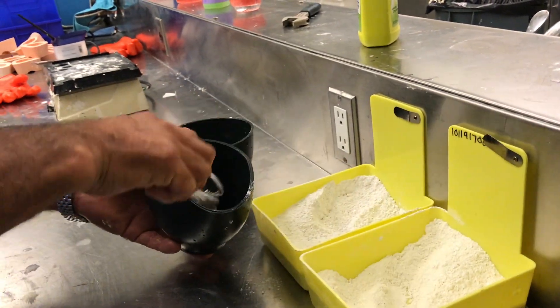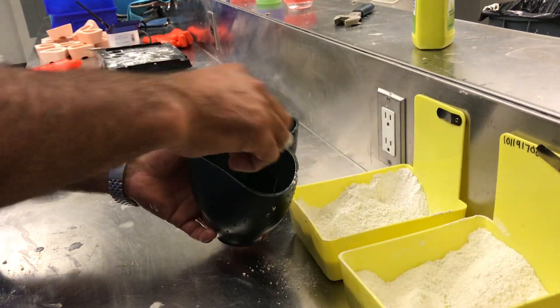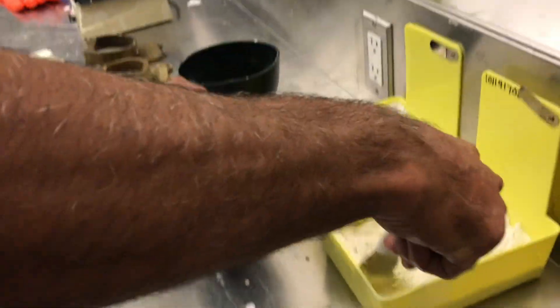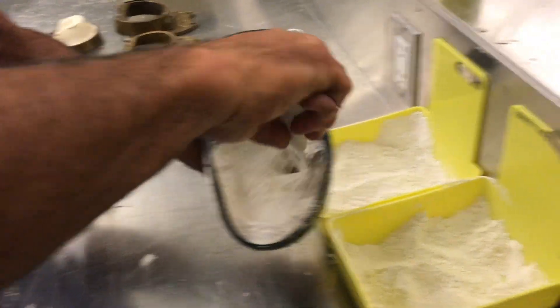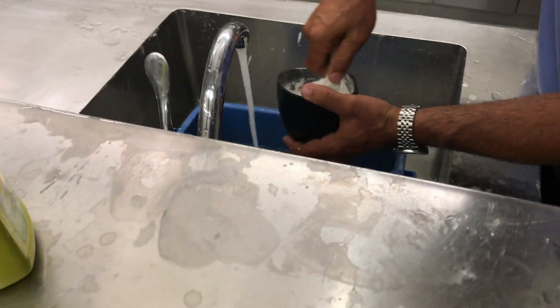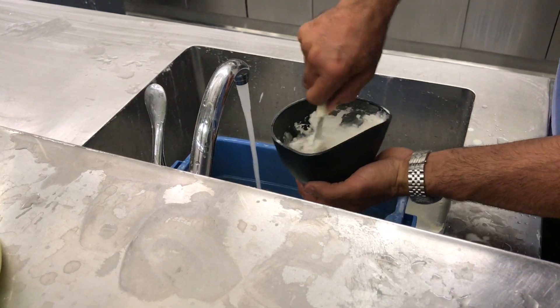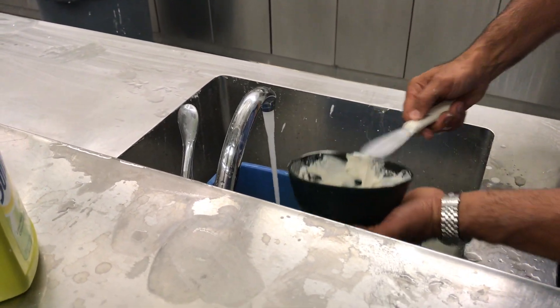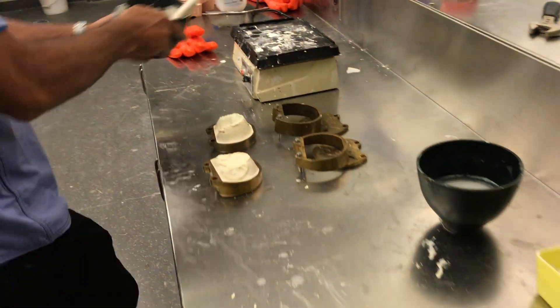I'm going to go with a half-and-half mix. You can certainly do both at the same time. I'm going to use regular water now, and this one you can mix it a little bit thinner. I just need to add a little more water — I'm not going to go under the faucet, I'll just wet my spatula, and that's all it takes sometimes. Just a little bit of wetness on the spatula — that's all you need.